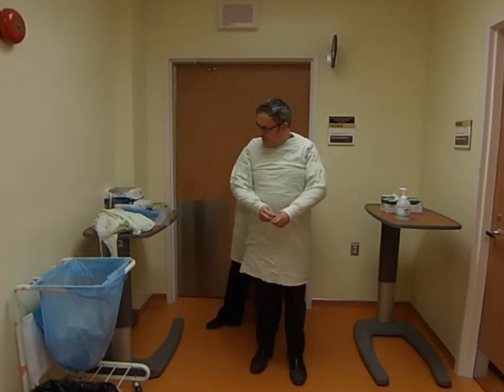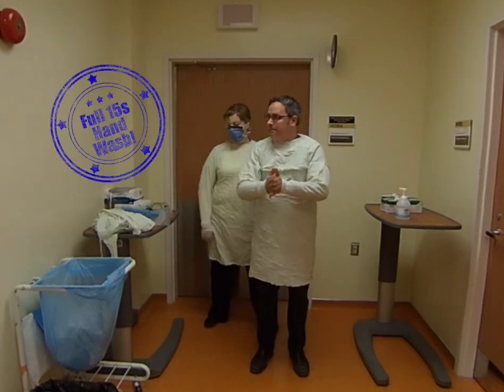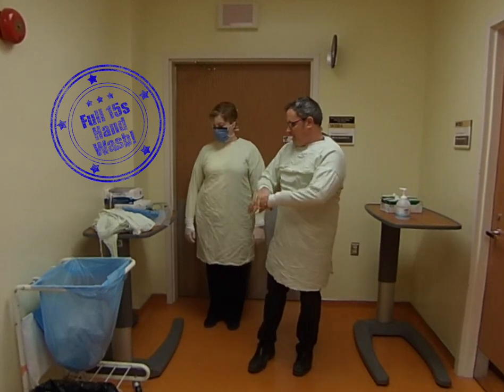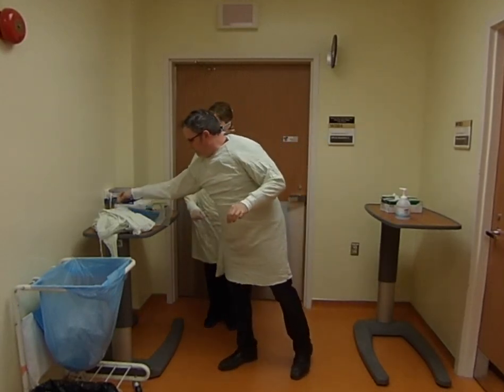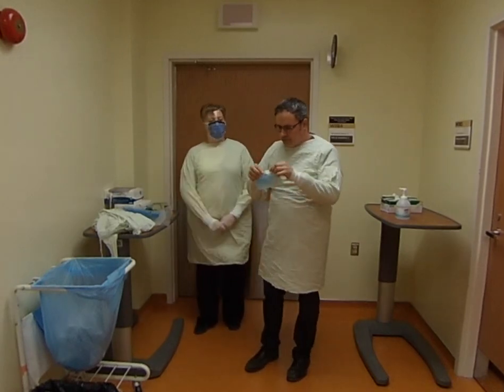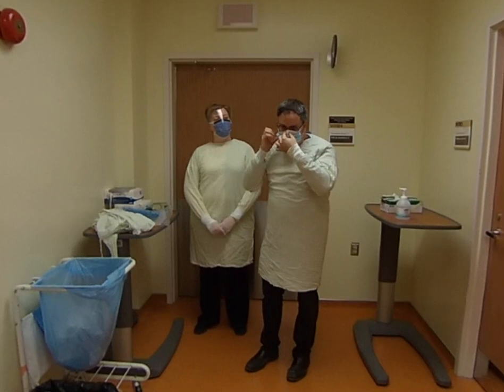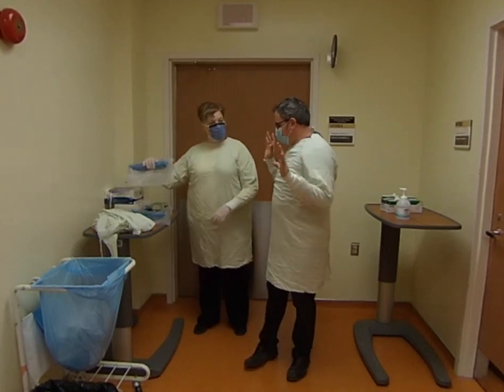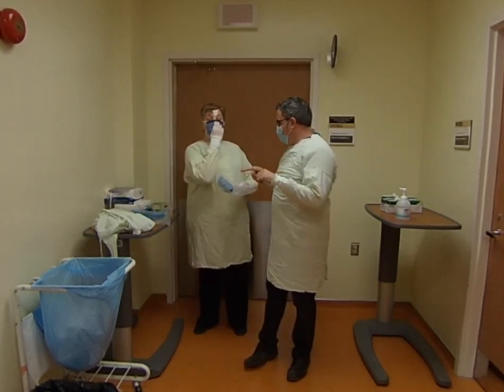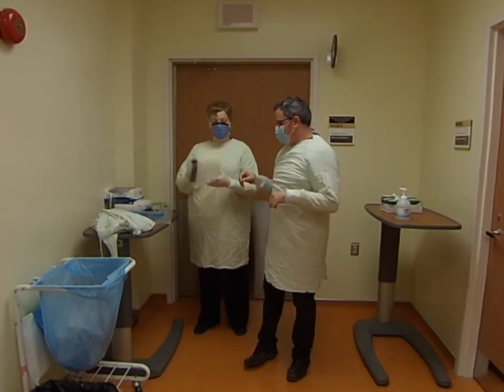Next I'm putting on my mask, but I'm about to touch my face, so I'm going to wash my hands again. Now I'm going to use a slightly different technique without the built-in visor — we're going to do the visor separately in case you're given a regular mask. Pinch the nose — actually you don't want to quite pinch the nose, you kind of want to use two fingers to bring it up and seal it. This is your visor.